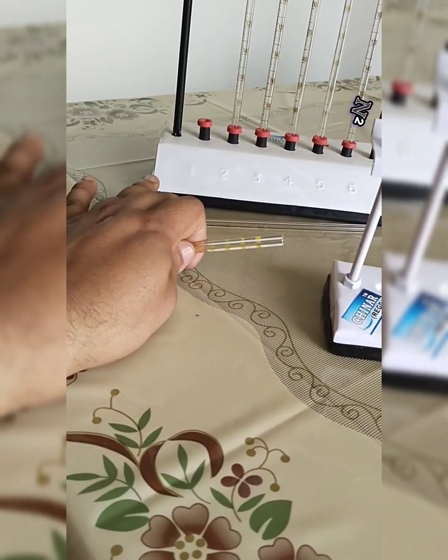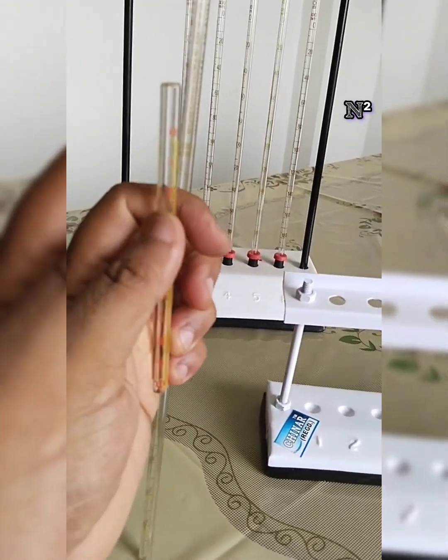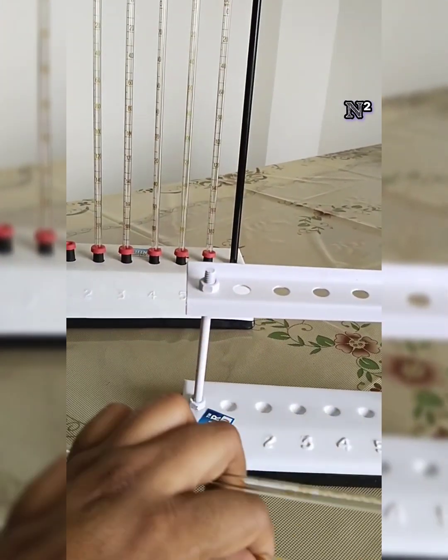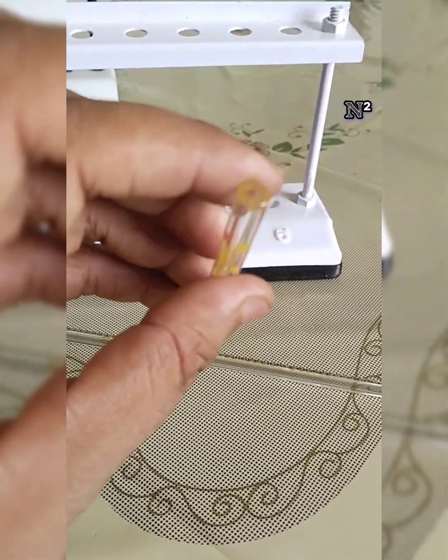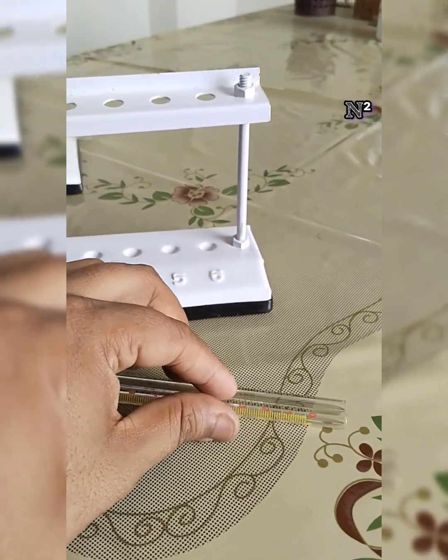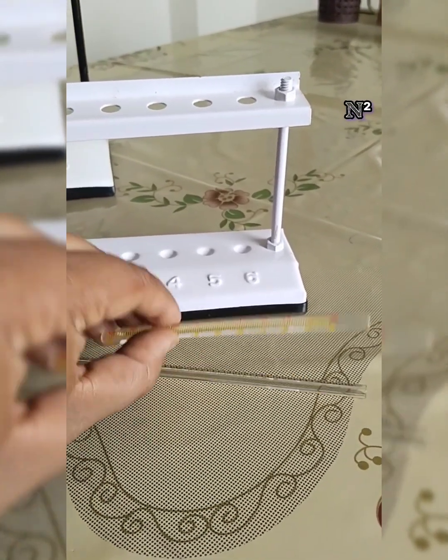That is called a pipette because this glass instrument has two open ends. But this Wintrobe's tube, as compared to that, is a very thick glass instrument of smaller size, and one end is closed and one end is open. That's the distinguishing feature.